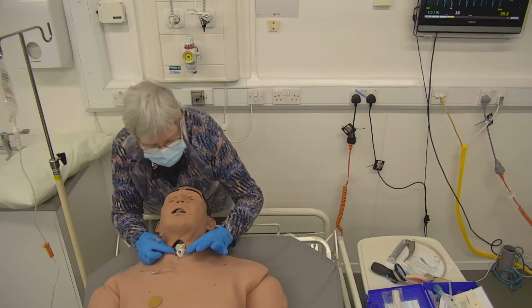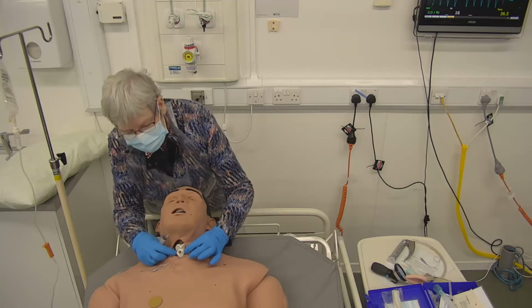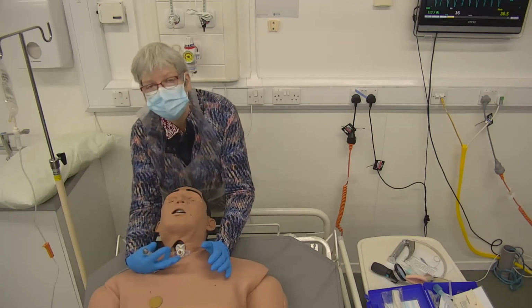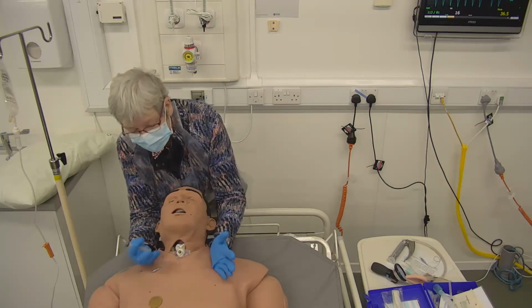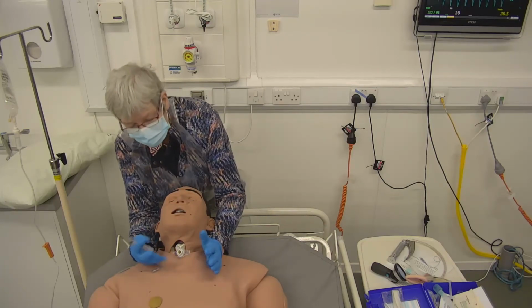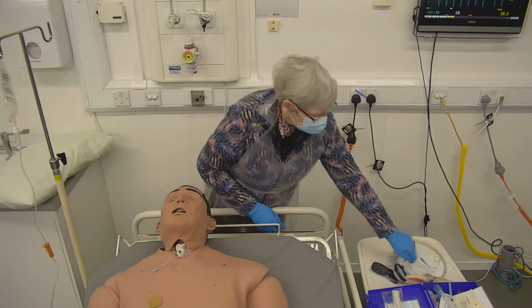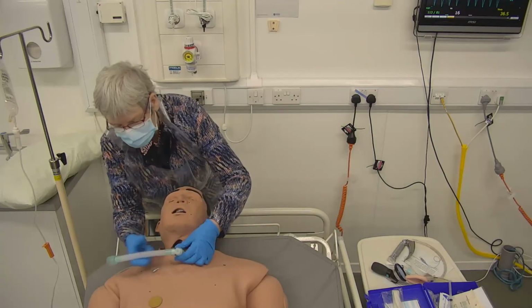And so what you also have is some tape that comes around and secures it, because you don't want it to pop out. The skin won't leave a hole like there is in Metiman. It will just kind of seal over and then be a little bit awkward if that person needs some support to breathe. You can attach them to a ventilator in exactly the same way.